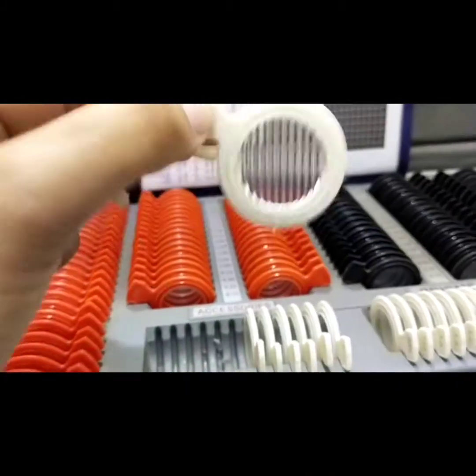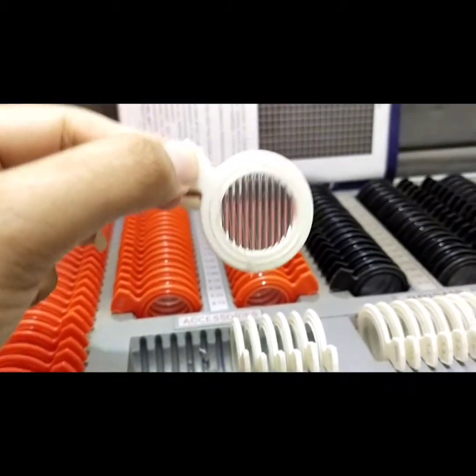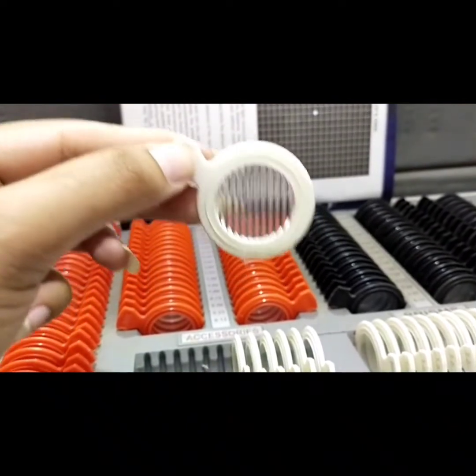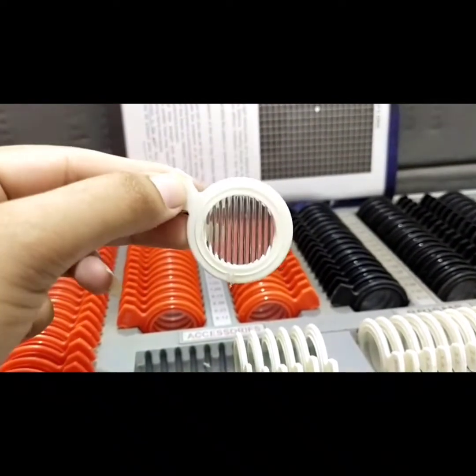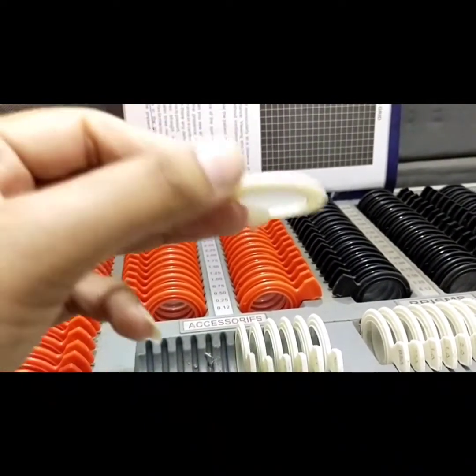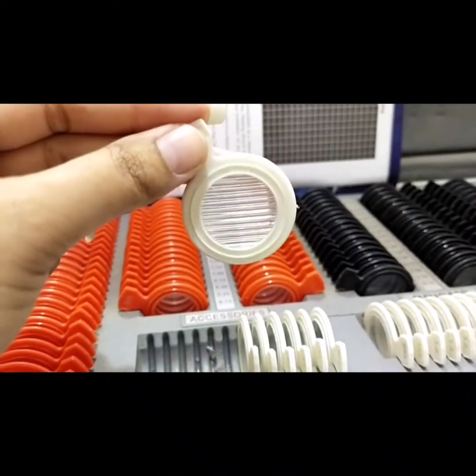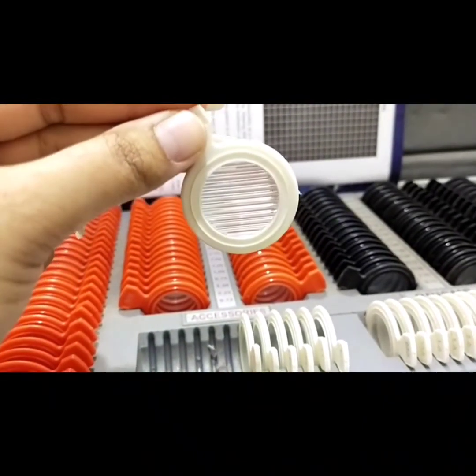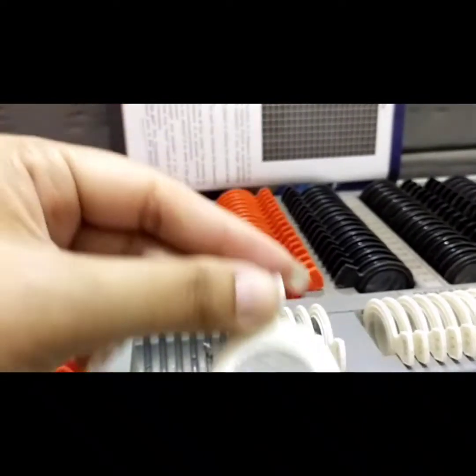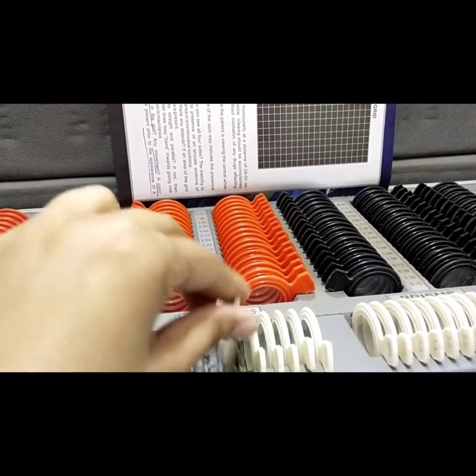The next accessory is the Maddox rod. The Maddox rod has several series of high-plus plano cylindrical lenses arranged in a frame, and it is used to determine heterophoria by the Maddox rod test.